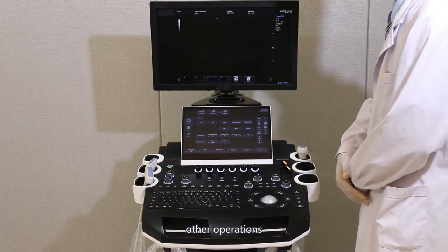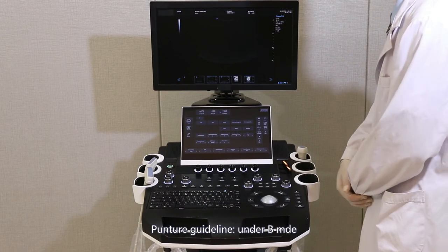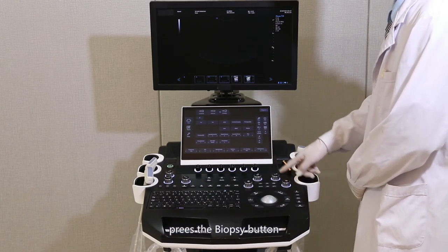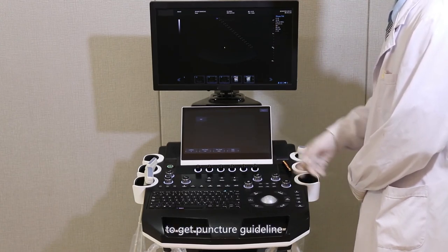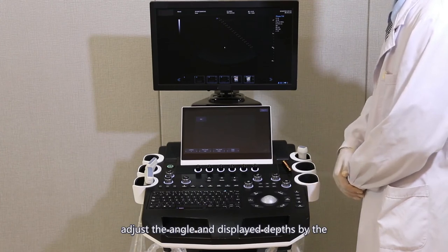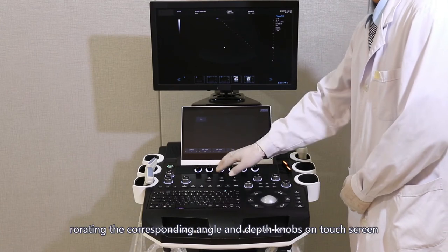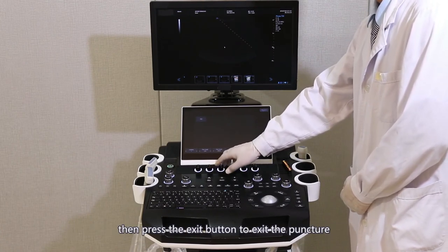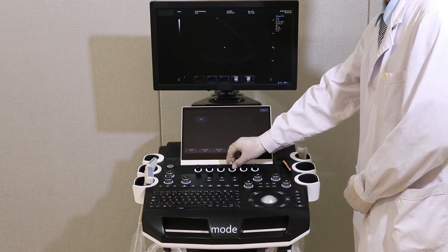Other operations — Puncture guideline: under B mode, press the biopsy button on the touch screen to get the puncture guideline. Adjust the angle and display depth by rotating the corresponding angle and depth knob on the touch screen. Then press the exit button to exit the puncture mode.